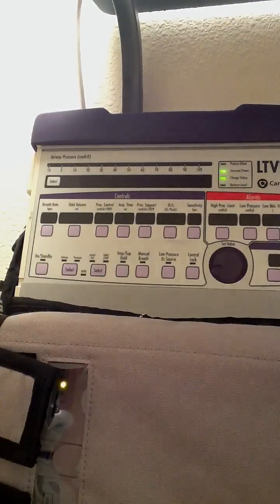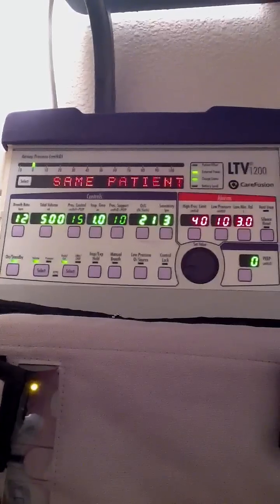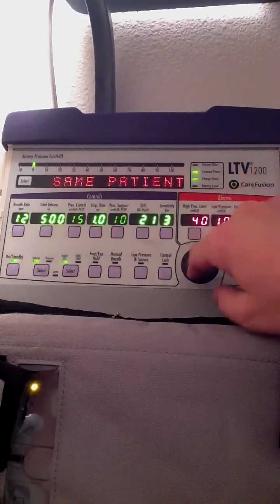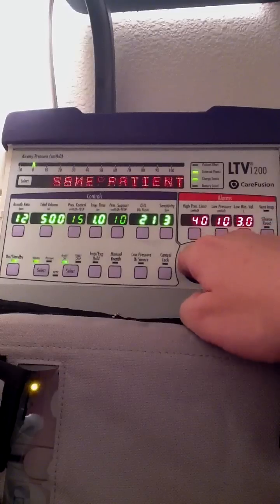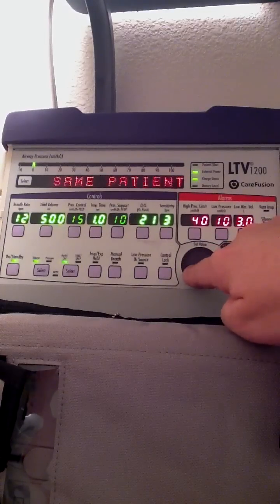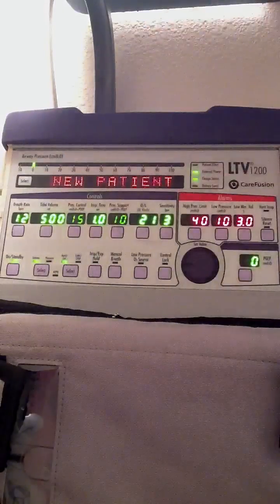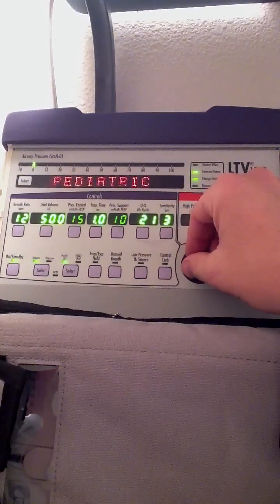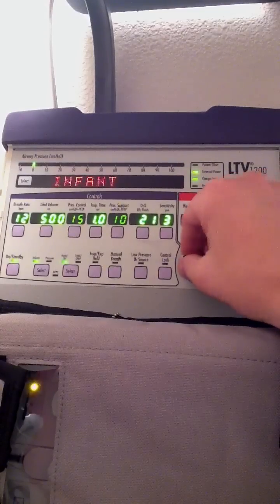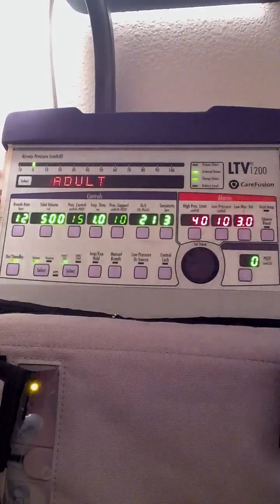Let's go ahead and turn the ventilator on — I'm going to hold it. The ventilator will turn on and run a self-test. It will ask me if I want to do the same patient; I don't want to do that. With this selector here you can see either new or same — I'm going to select new and hit the select button. It's going to ask me infant, pediatric, or adult. There are generic settings for each patient. Let's go ahead and select adult, then hit select.